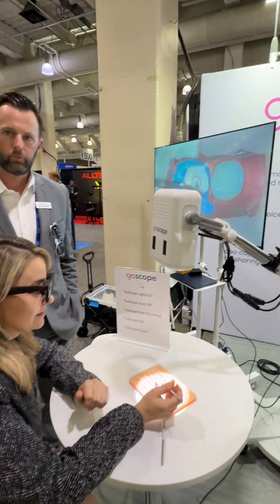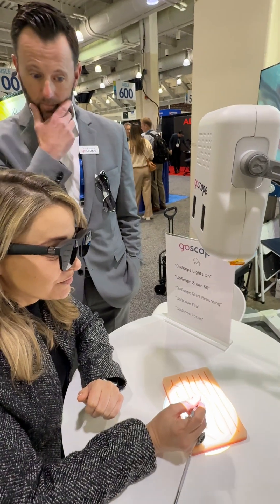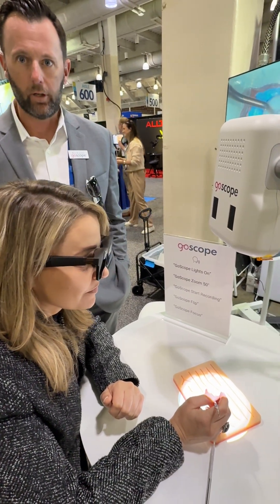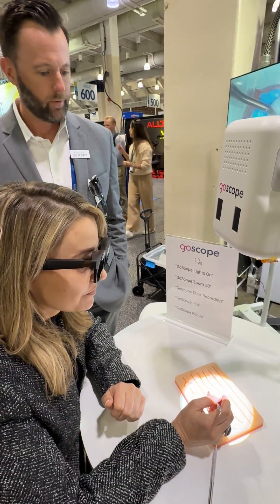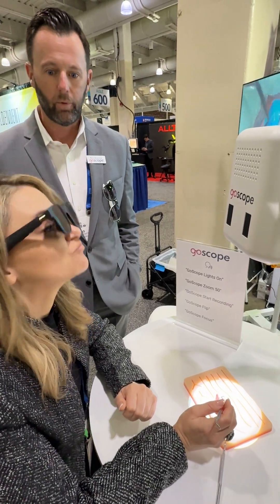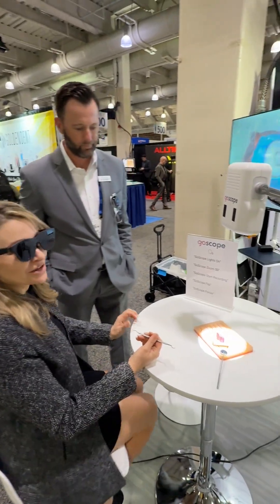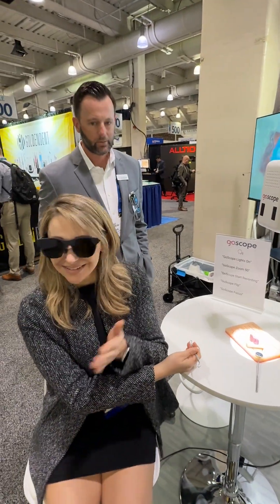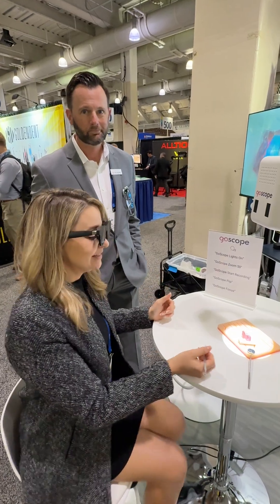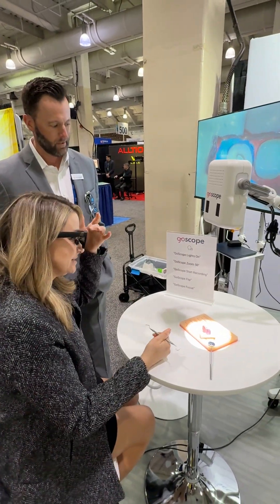This is a fully digital 3D voice-activated microscope. Adrian is able to see anything that the scope head is looking at — completely ergonomically free. She can move her head out of the field of vision, talk to an assistant or student, and still see everything that's in the surgical field. That's so cool.